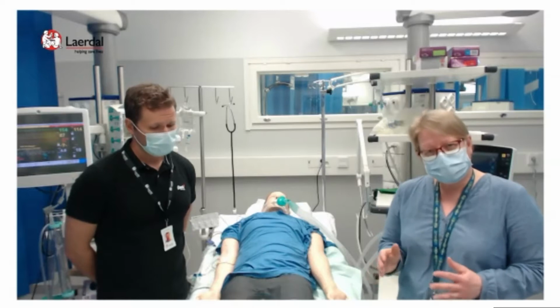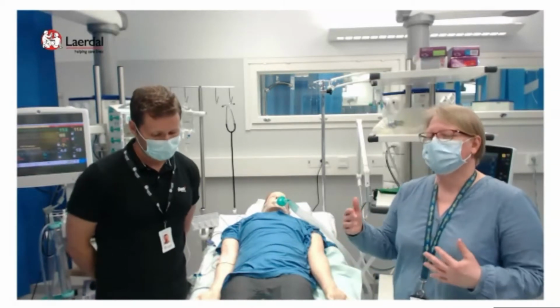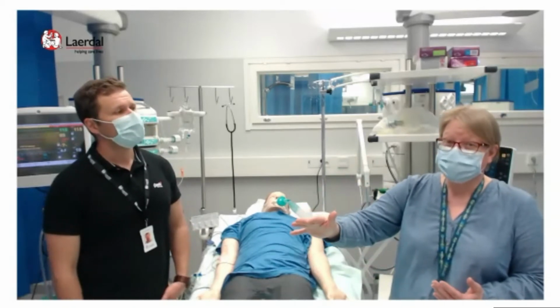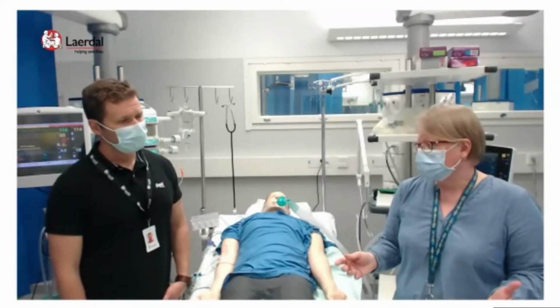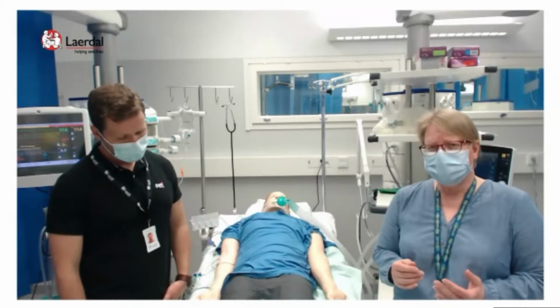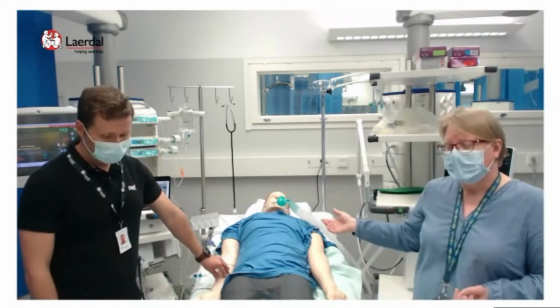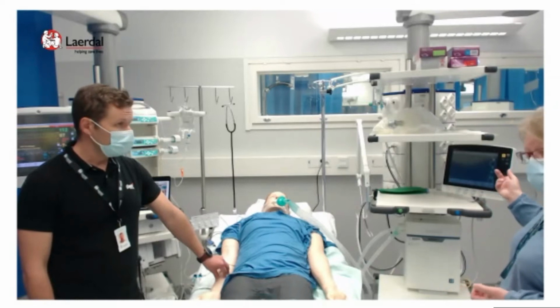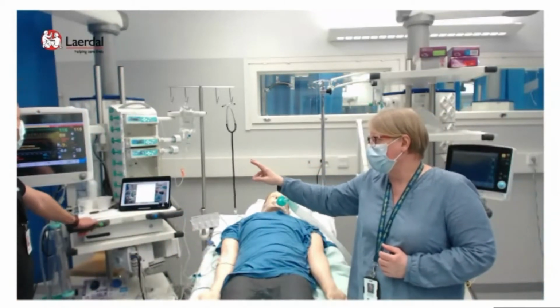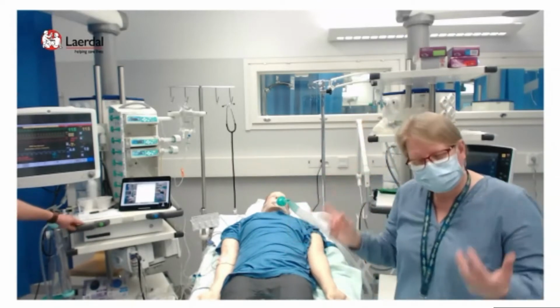So it is best to train professionals, in my opinion, by doing the simulations in situ, because there, as you can see, is the equipment, and all the medications we have in the background, which you don't see. There's an automatic medication cabin, which should be used by nurses and others. This is familiar, and the solutions which Laerdal has been producing, like advanced mannequins such as SimMan, which can be put onto the ventilator and which can be intubated. And now it is on our Servo-i ventilator all the time. We have also been able to put the Laerdal patient monitor onto our normal regional monitor with screen share, so the nurses and doctors can look just where they usually look.